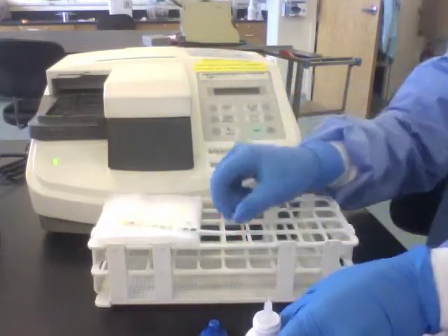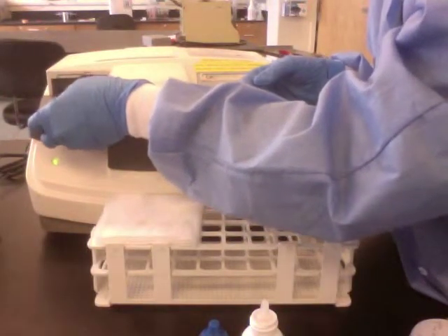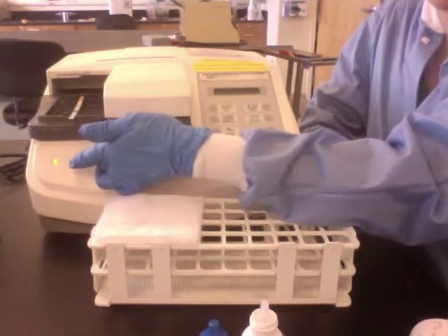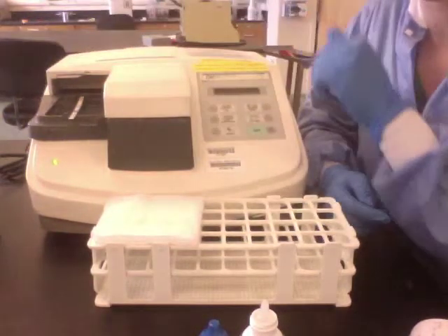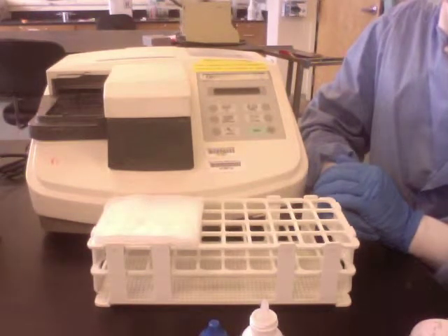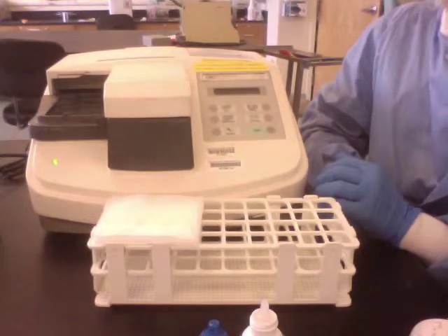Be sure that you do not touch the nozzle of the QC vial to the pads, as you could cross-contaminate them. Insert your strip onto the little plate with the strip flush with each notch, the back and the front. Then the arm takes the QC strip away and it continues on with testing.